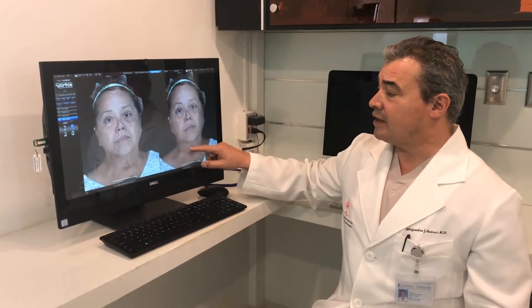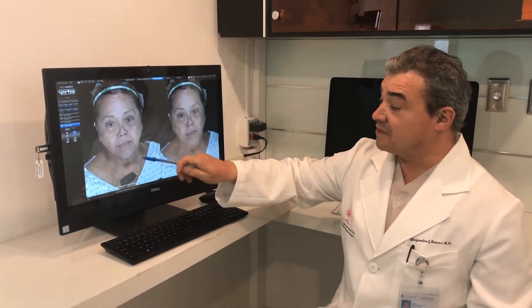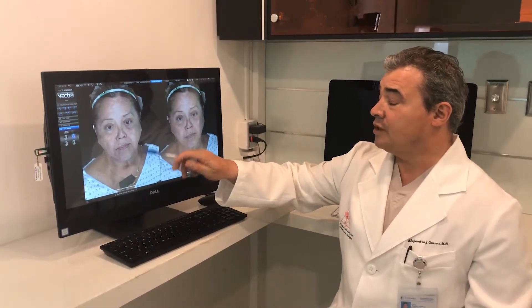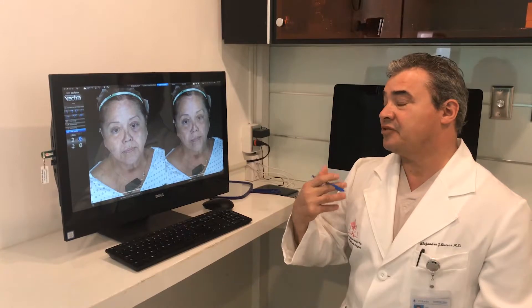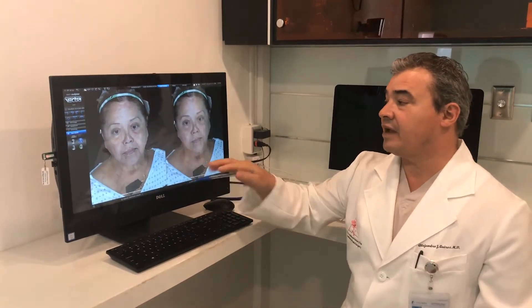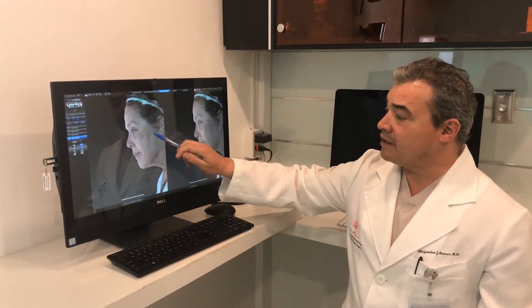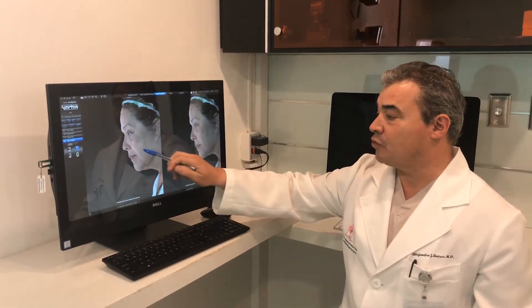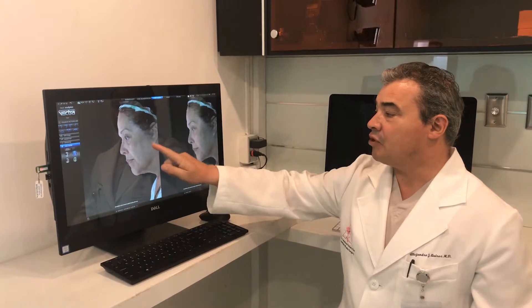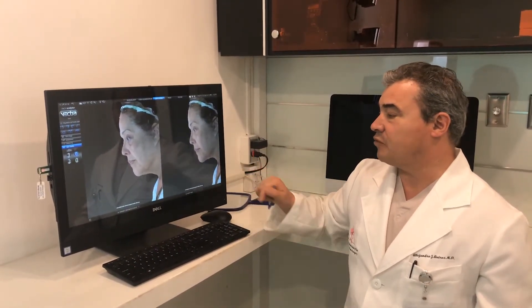At the same time, we can use the Vectra to explore — besides showing the surgical changes — also the quality of the skin. We can take images that will show all the sun damage and all the flaws in the skin. The dermatologist can also use that to explain how we're going to improve not only the surgical parts, like the nasolabial folds and the neck, but also the quality of the skin, erasing all the damage and flaws.